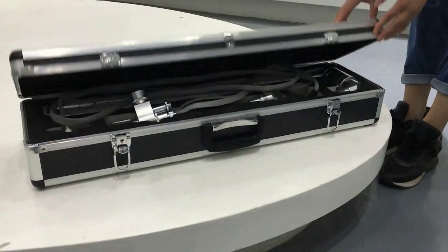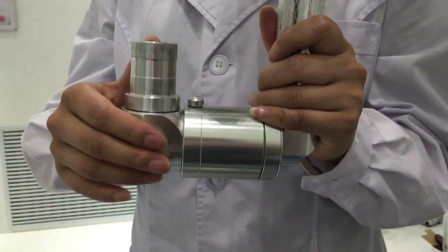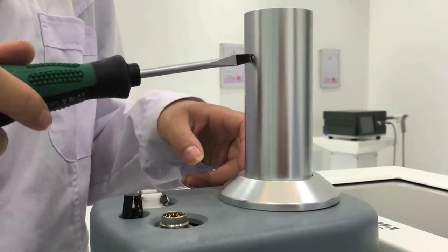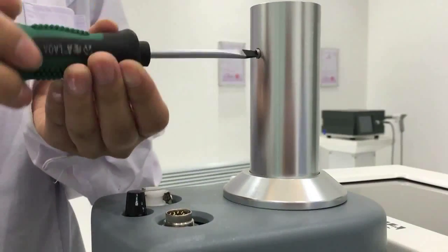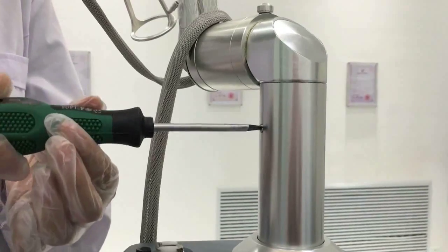Installation. Installation of joint arms: take joint arms out from the carton, hold down the joint arms connector arrow clockwise rotated 90 degrees. Use a screwdriver to loosen the interface side of the joint arm screws. Steadily insert joint arms into the interface and fix the screws.